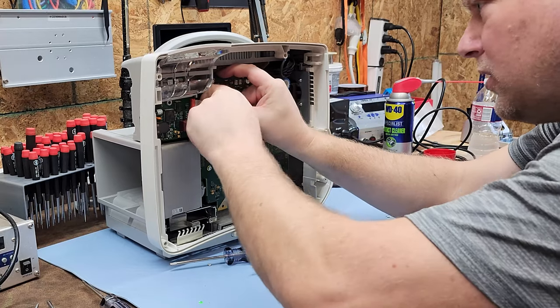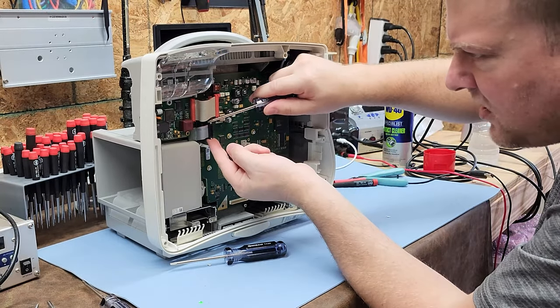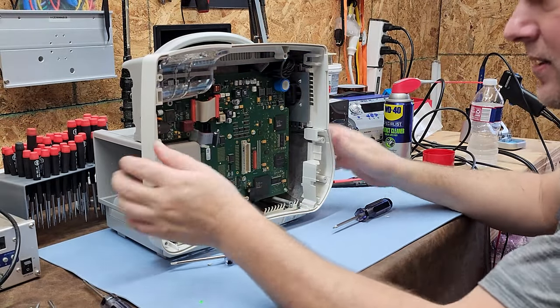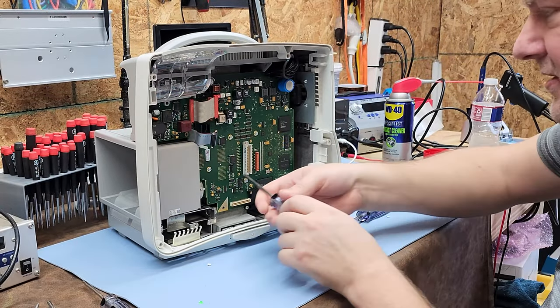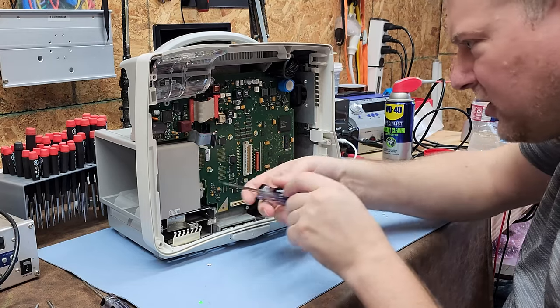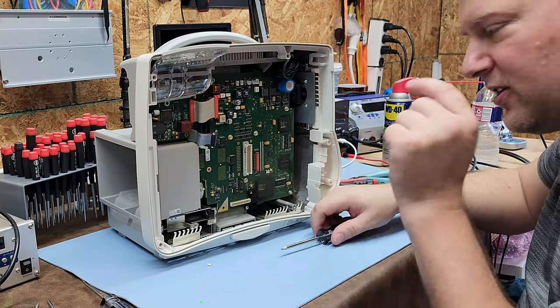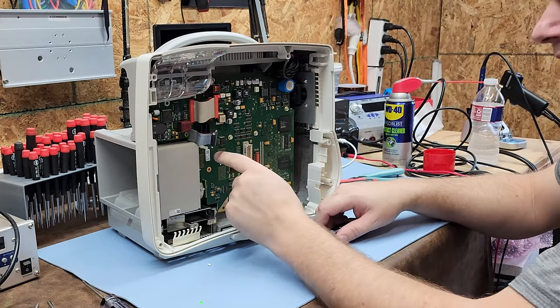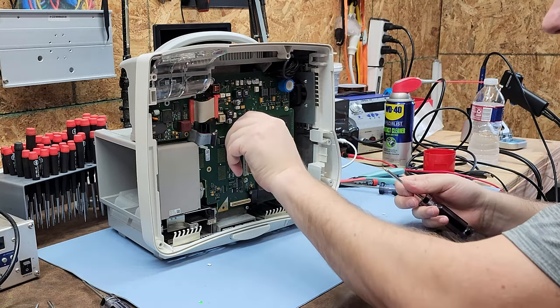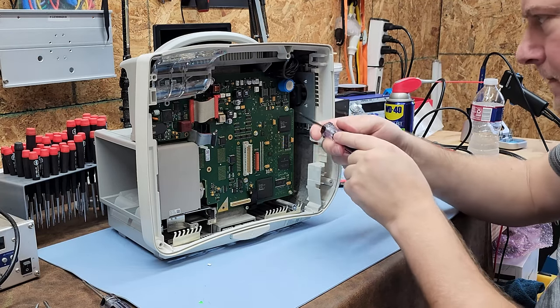Here is the ECG out board. These metal retainer clips — you have to squeeze them in to pull them out. Look at all the fasteners — one would say the Germans over-engineer everything. This board has a very large ground plane. The vias here are for the backplane — those pins are soldered completely through the board. Be careful when laying this down: those pins are sticking out the other side.